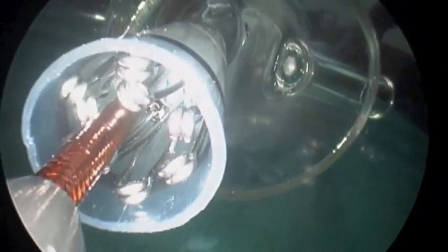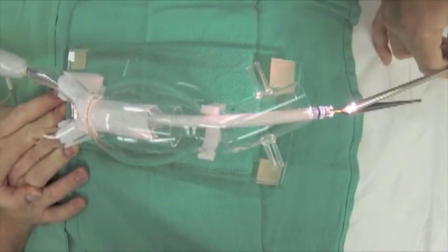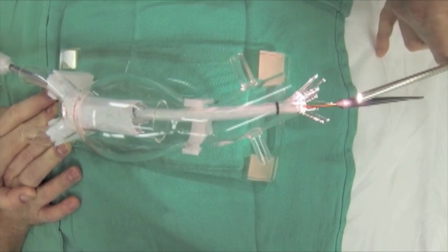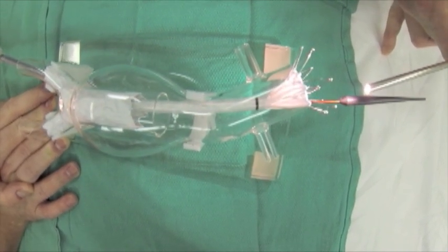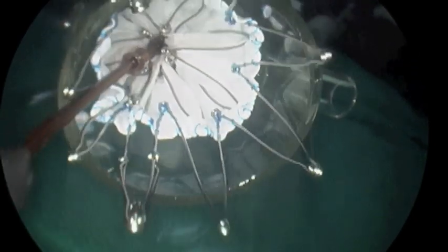Then in a controlled fashion, the graft is unsheathed. Here you see a view of that from the external viewpoint — the controlled deployment of the stent graft, the uncovered portion, and one length is deployed.